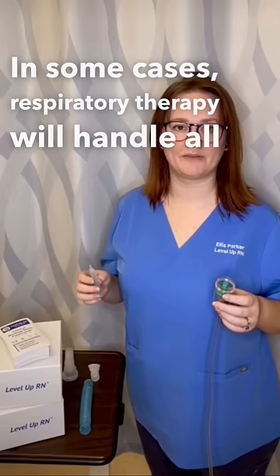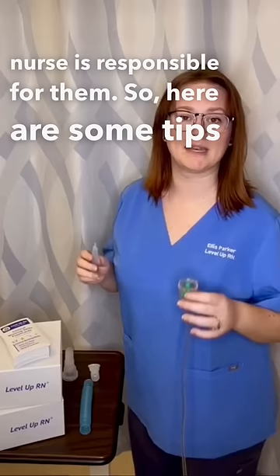In some cases, respiratory therapy will handle all of the nebulizer treatments, but in other cases, the registered nurse is responsible for them. So here are some tips on how to provide a nebulizer treatment.